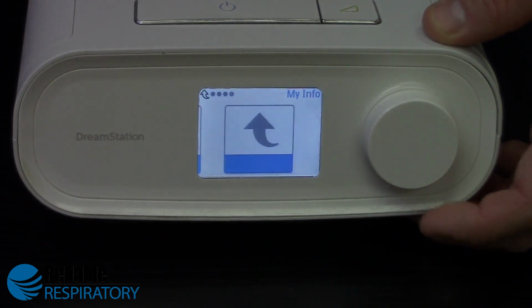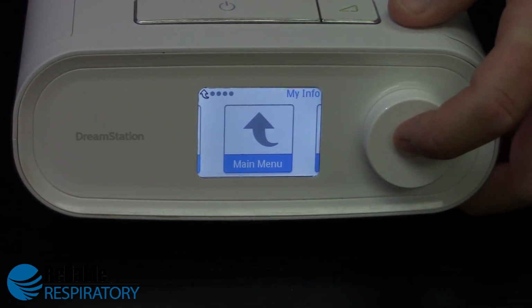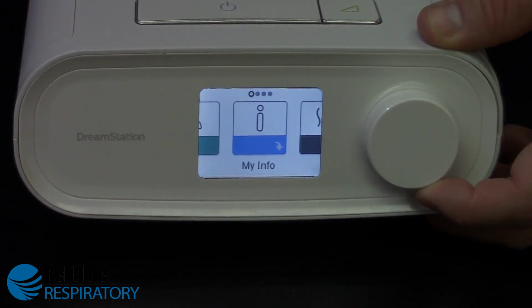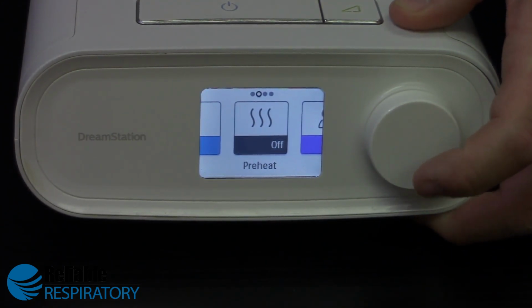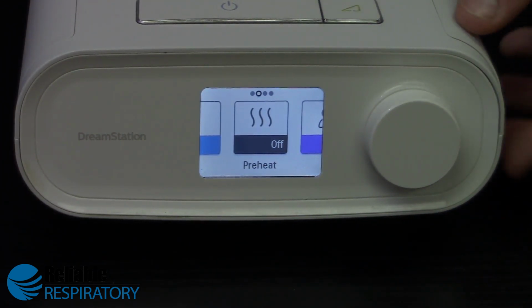And so once you scroll through all that information, you go ahead and push the dial again under Main Menu to go back to the main menu. The next option you'll see is Preheat. What Preheat does is it will actually warm up the water in the CPAP's humidifier before actually turning the device's motor on. And so if you want it really hot and really humid, pretty much from the get-go, it'll preheat it and takes about an hour. And bear in mind, each time you intend to preheat, you'll have to go ahead and select this accordingly.